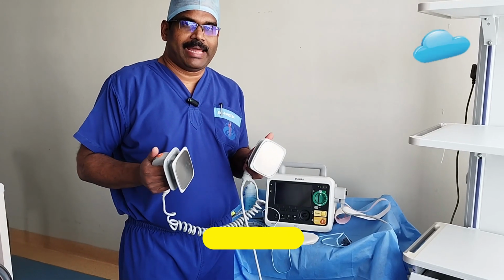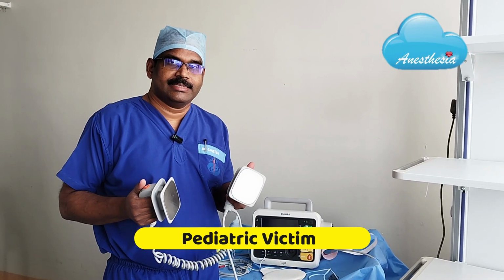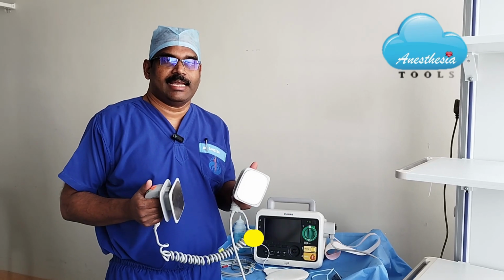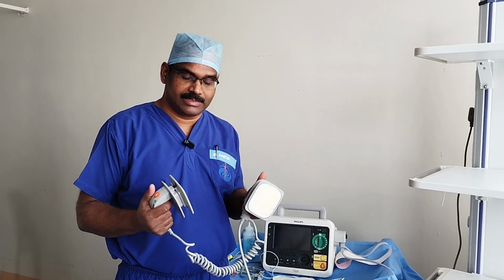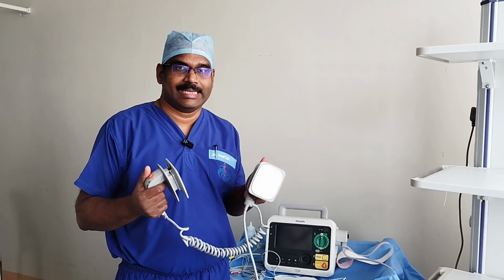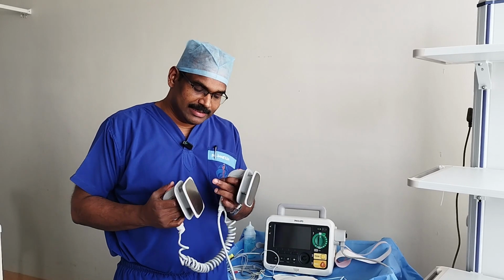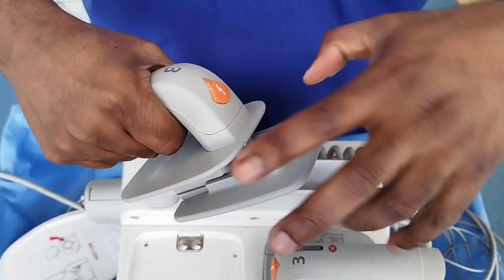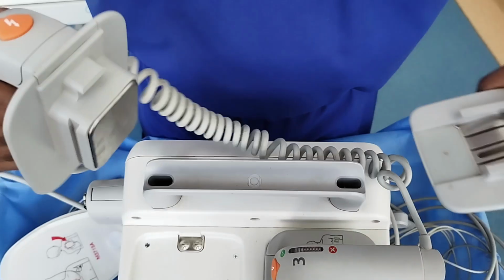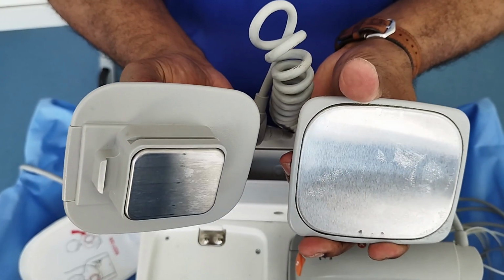Can you use these paddles for a pediatric victim? The answer is yes. If the child is grown enough, you can apply on the chest in the designated positions. Make sure these pads don't touch each other. For a smaller child, we need a lesser surface area that is actually provided here itself. You can remove it, and now you can find the pediatric paddle size.